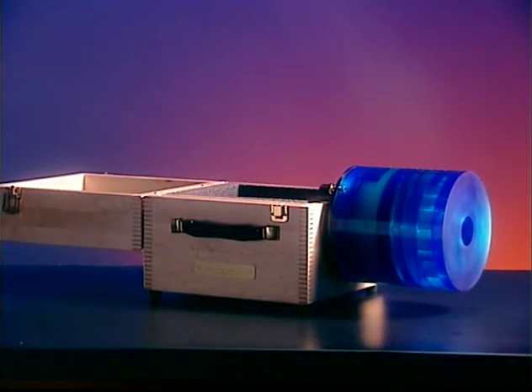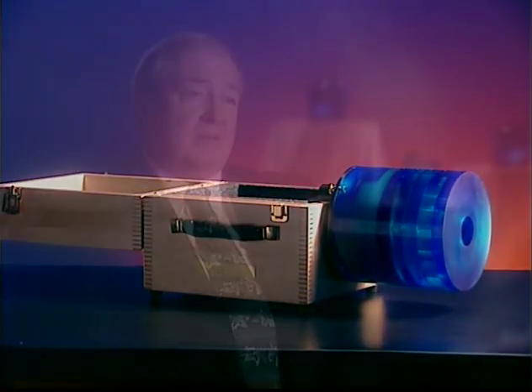In fact, then, that is one of the challenges of the Catphan, as I mentioned earlier, in keeping up with technology. We've had to move from CAT scanners that resolve 2 millimeters to CAT scanners that resolve 1/4 of a millimeter. And this has been one of the aspects that we've been able to keep up with the modular design, so that we could replace a module that resolved 7 line pairs per centimeter with one that now resolves 20 or even 21 line pairs per centimeter.